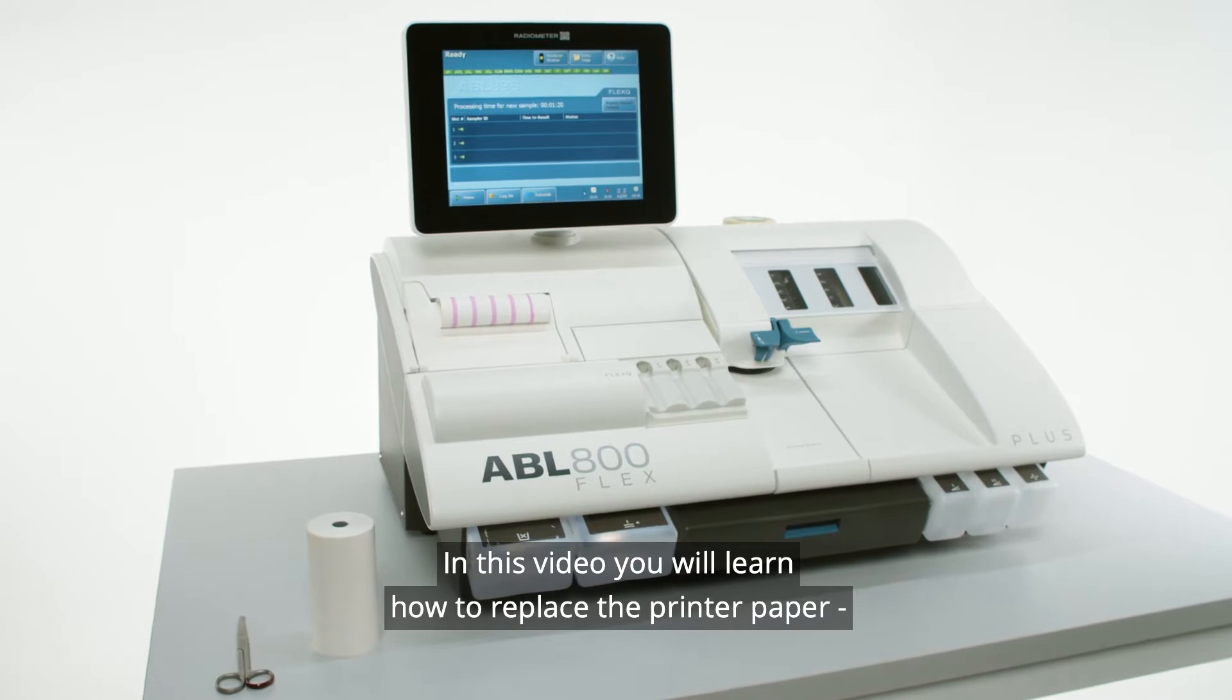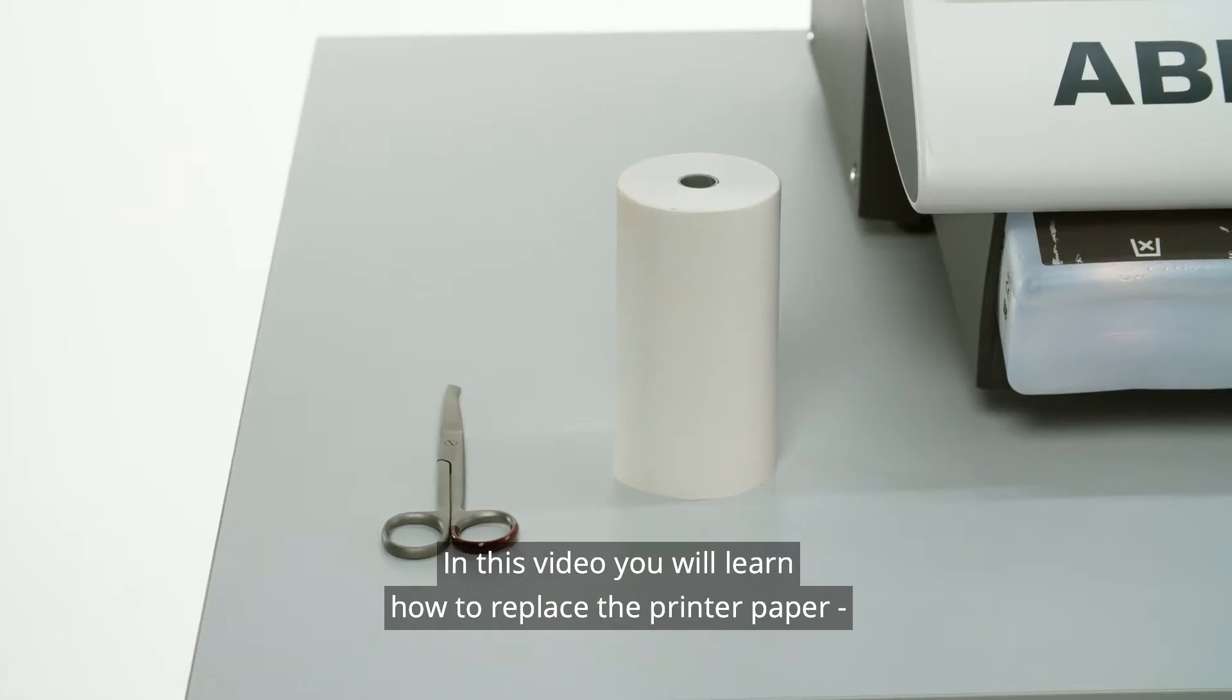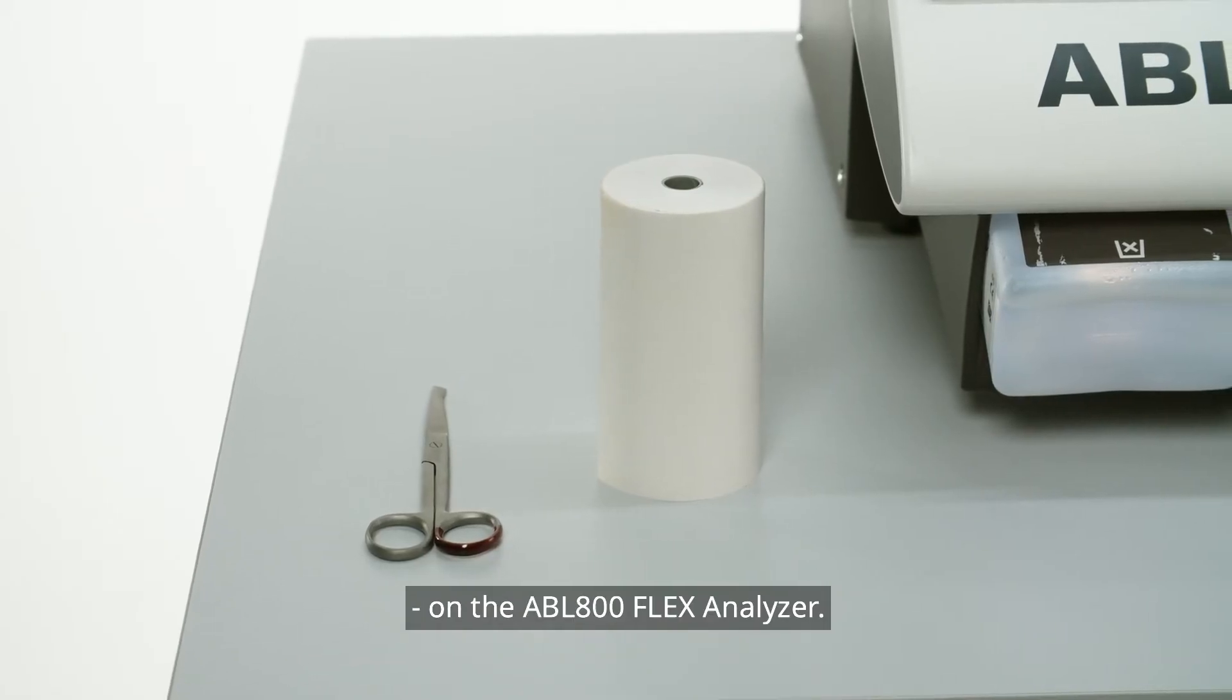In this video, you will learn how to replace the printer paper on the ABL 800 Flex Analyzer.